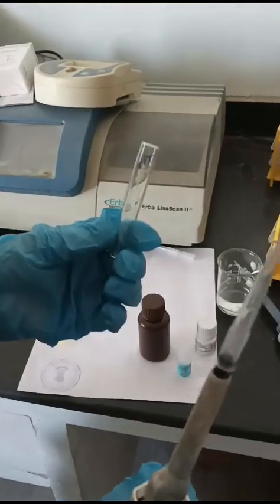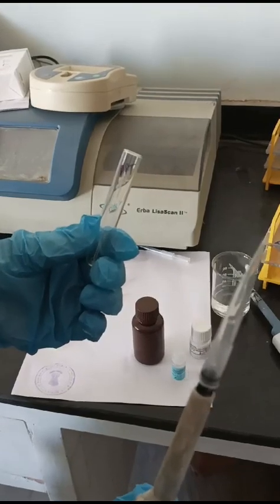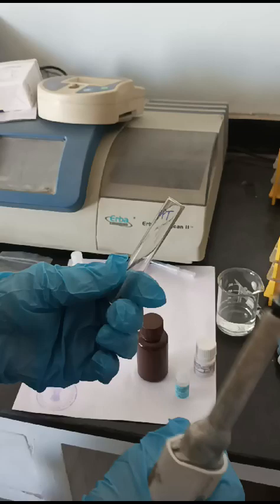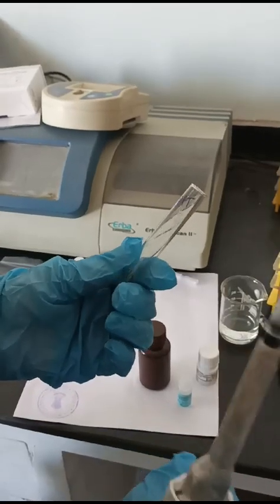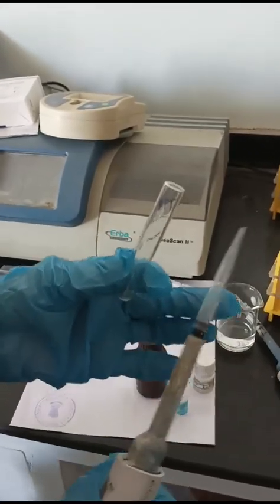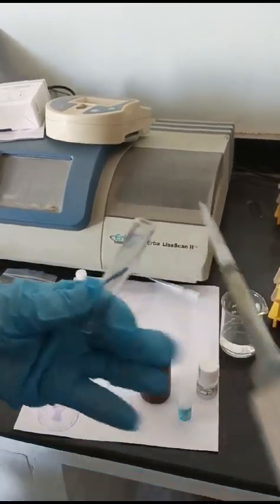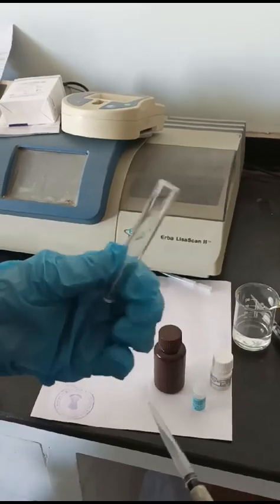Measurement and use of the instrument are the same, but the only extra steps involved in the measurement of HDL will be explained here. The rest of the measurement process is almost the same, so I won't be showing that other part, only the extra steps.